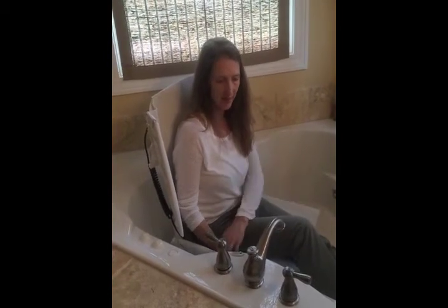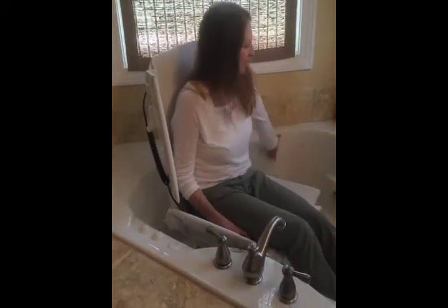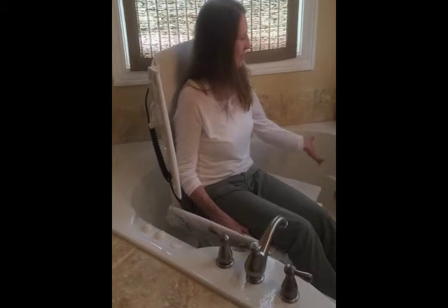These are really good for standard size tubs. Again, if it's a deep tub — deeper than 17 inches for this AquaTech — it's really important that whoever is doing the transferring isn't a total-assist transfer; they're going to need some transfer skills to maintain their balance. This tub is a little iffy because it's not the standard oval-shaped tub, and you've always got to worry about somebody falling off the side. But if someone's got good balance, it's not a bad lift for the tub.